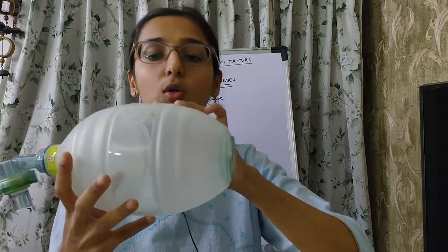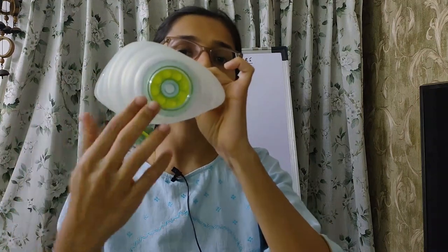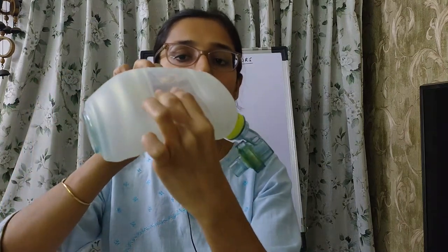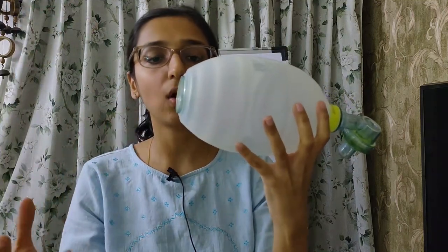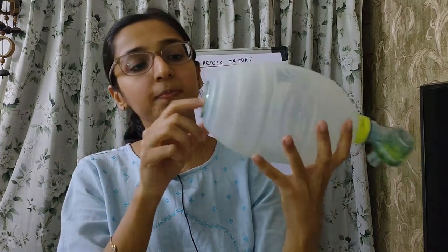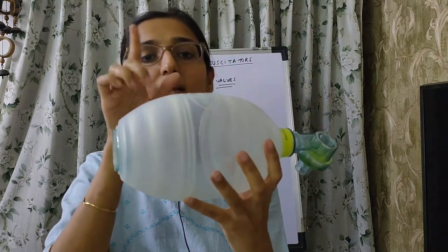When the bag is released after compression, a negative pressure is generated within the bag. This negative pressure sucks in ambient room air or oxygen from the reservoir bag through this valve into the bag. So this valve opens when a negative pressure is developed within the bag.